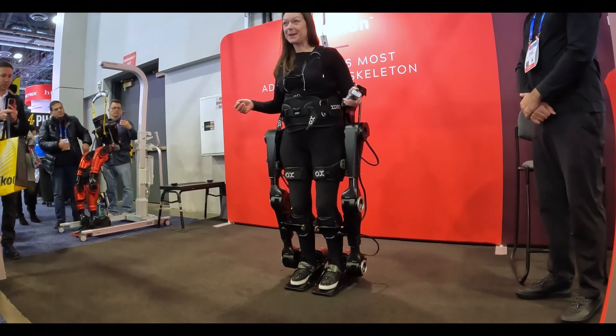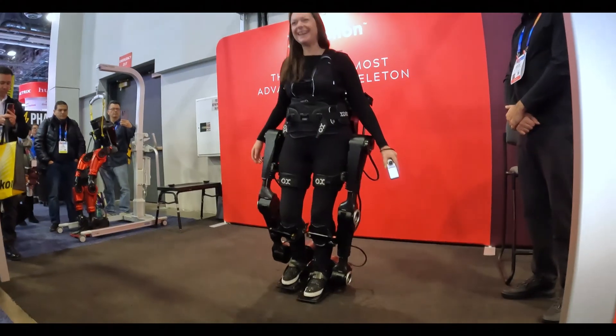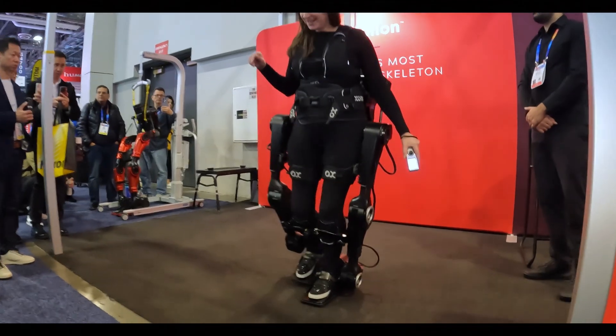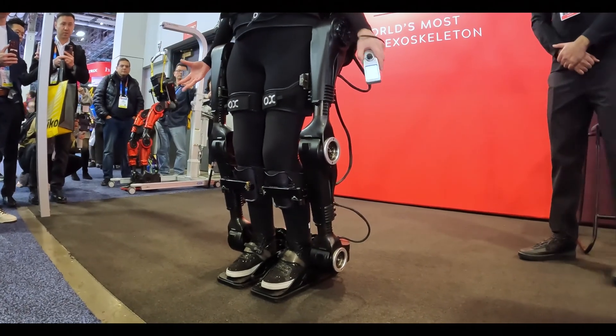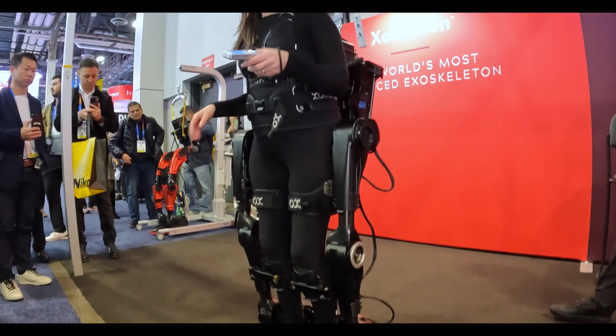I'm getting going for a forward walking motion. And it's so quiet — you can't even hear it. It will just move my body so naturally. You can see just the way that it allowed me to walk forward and keep talking.